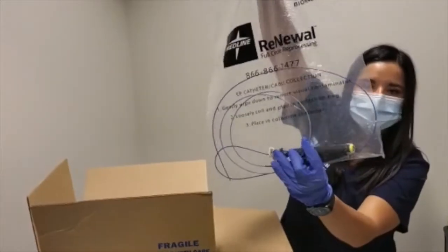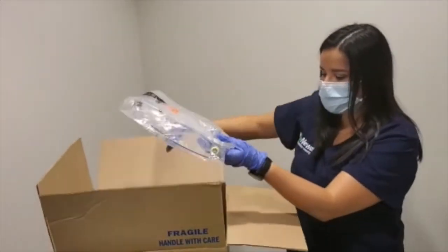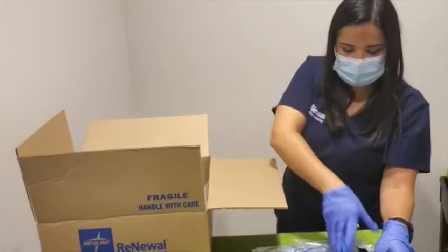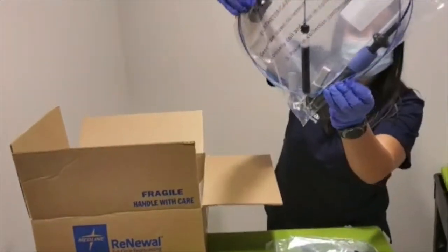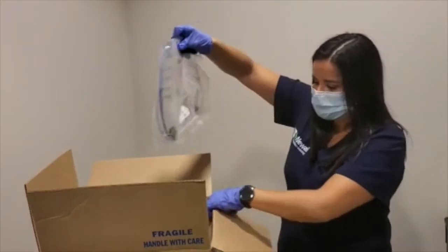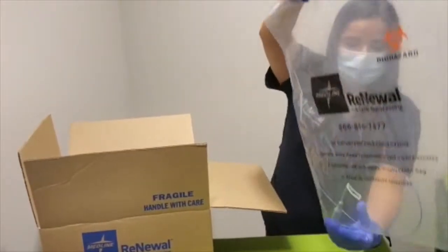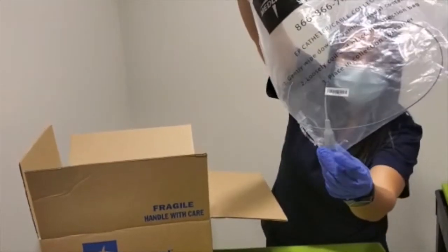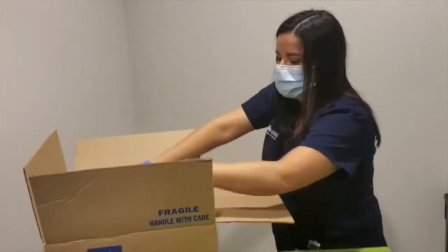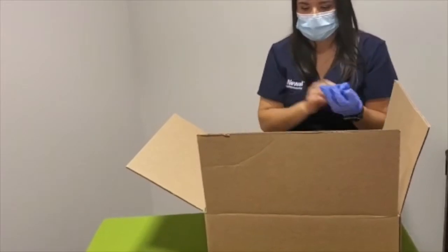These with the big handles are two steerables. So far we have four, and I'm trying to disperse the volume by stacking them. These with the big handles here are two more steerables. This with the little handle is a fixed catheter. Now that I've kept a tally, I know that I have six steerables and one fixed.